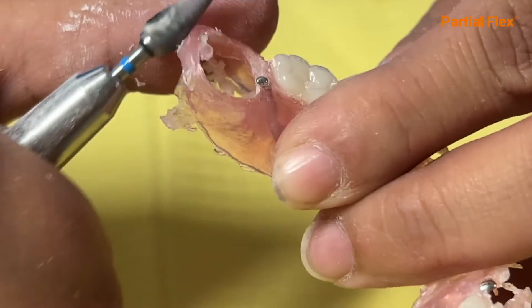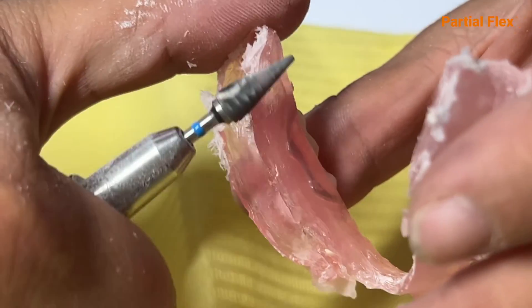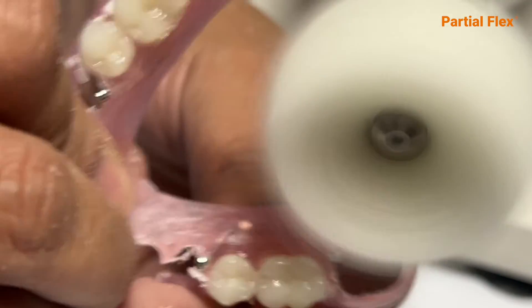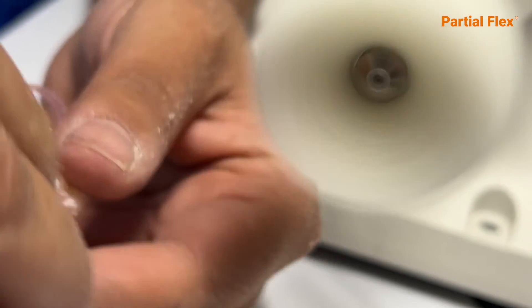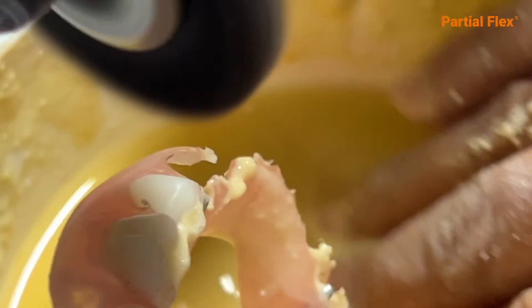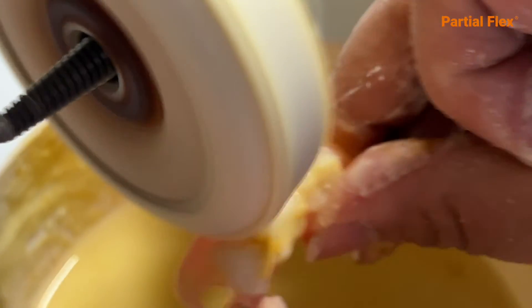Remove the sprue completely with a carbide flame-type burr. Remove all leftover material and residues. Adjust and begin the polishing process using a felt rotary bit. Continue with a black B20 brush. Use water and fine ground crystalline silica or very fine pumice grit for the interproximal spaces, then use the cotton polishing pad. Continue fine polishing with ground crystalline silica or very fine pumice grit.